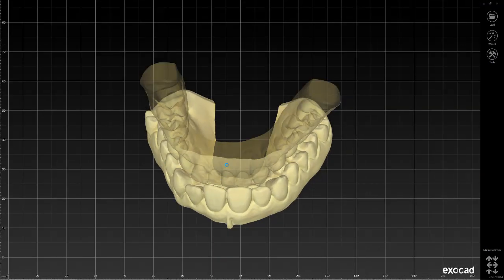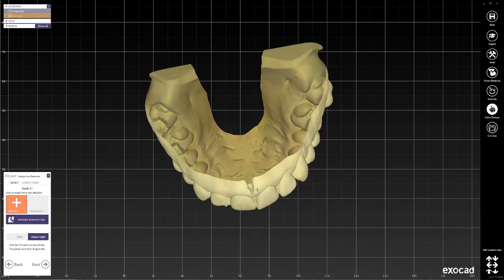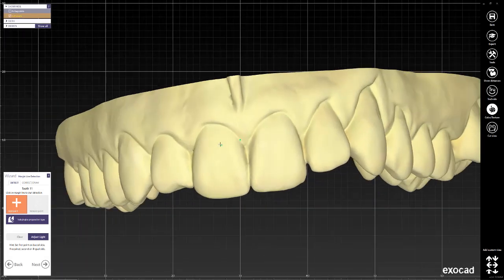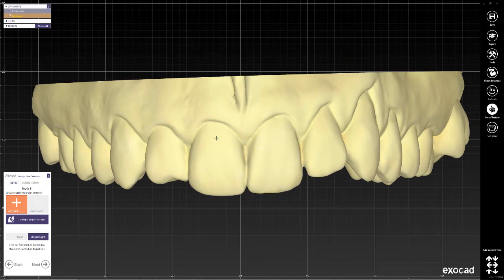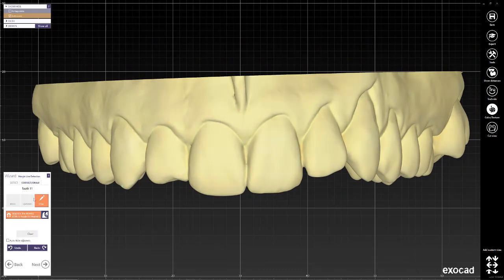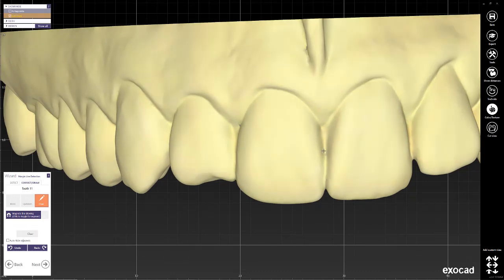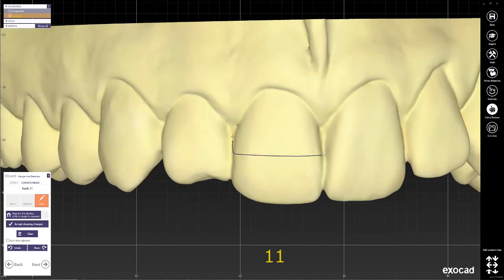The reason why I like this process better is because it allows me to draw the window that I want rather than draw around the window, and I have as much control. So I'm going to select to draw the margin of the telescopic, and then I'm going to draw the window in the shape that I want.